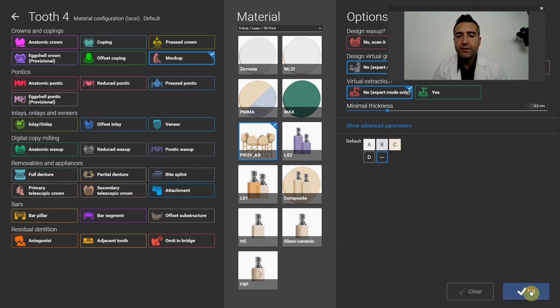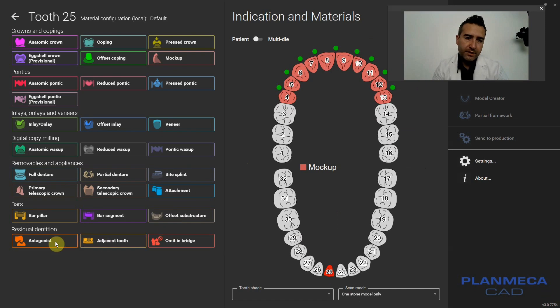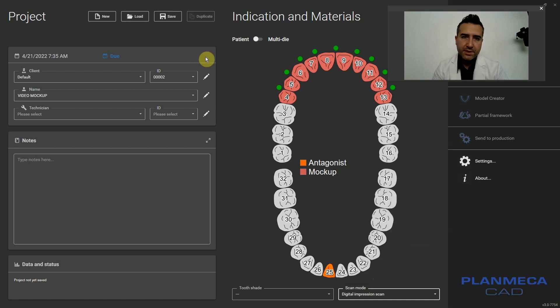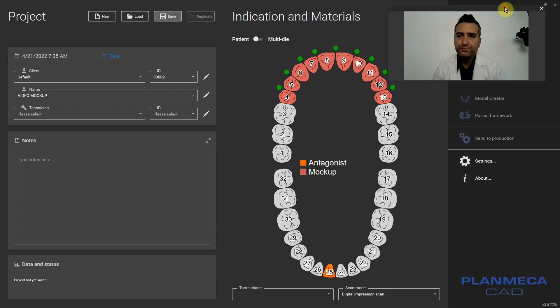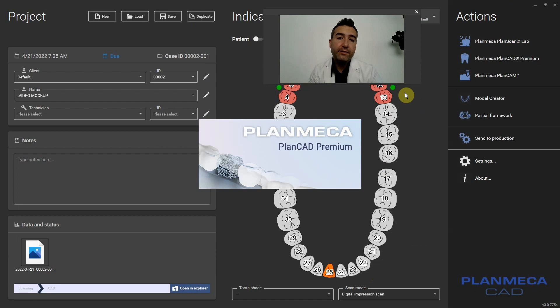Minimal thickness is 200 microns. You can import an opposing if you're worried about it. Digital impression. Now let's go ahead and go to the design. You're going to have your Mockup. Leave the connectors highlighted — you're going to remove them later. But it prompts an extra feature in the software which lets you hard cut to the model, essentially to the block-out model. We'll show you that in a minute.